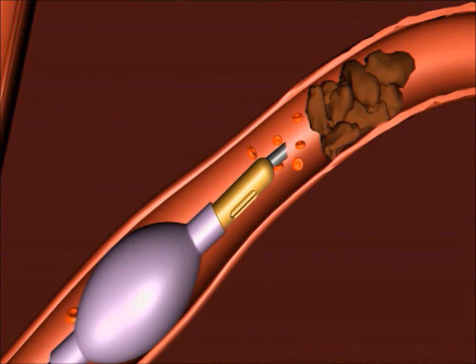Once the catheter has reached the ischemic site, the balloon is inflated, fixating the catheter and sealing the ischemic site, allowing the physician to remove the guide wire. This allows the second function of the designated lumen to be utilized for aspiration.